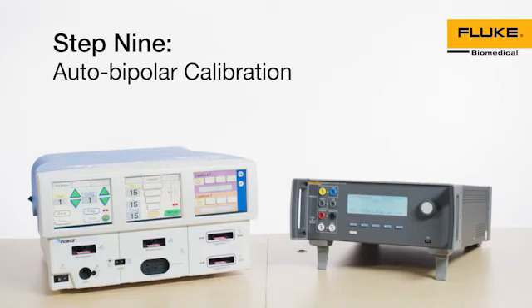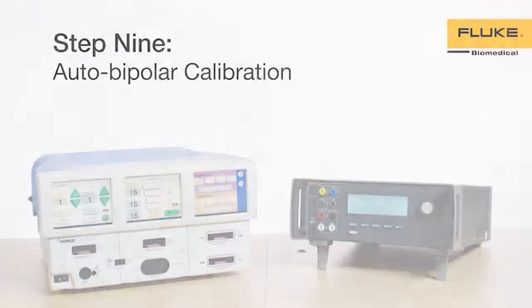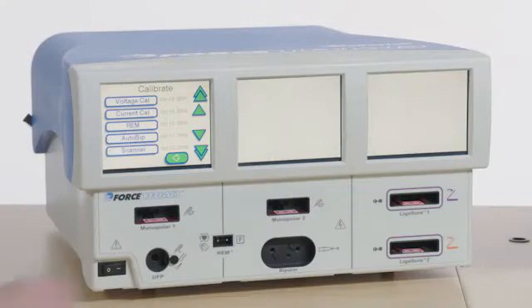Step 9. Auto-Bipolar Calibration. Select Auto-Bipolar from the Calibrate menu on the Force Triad.